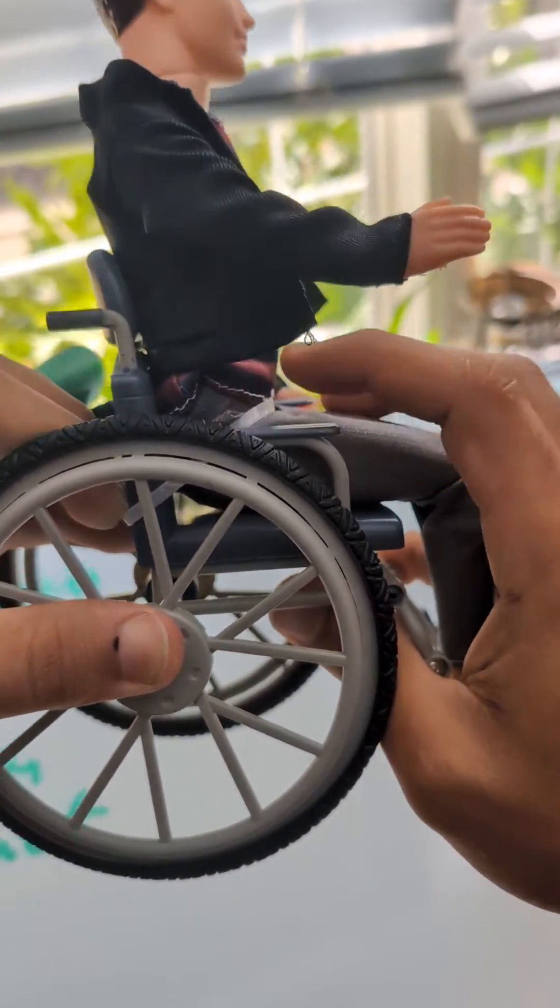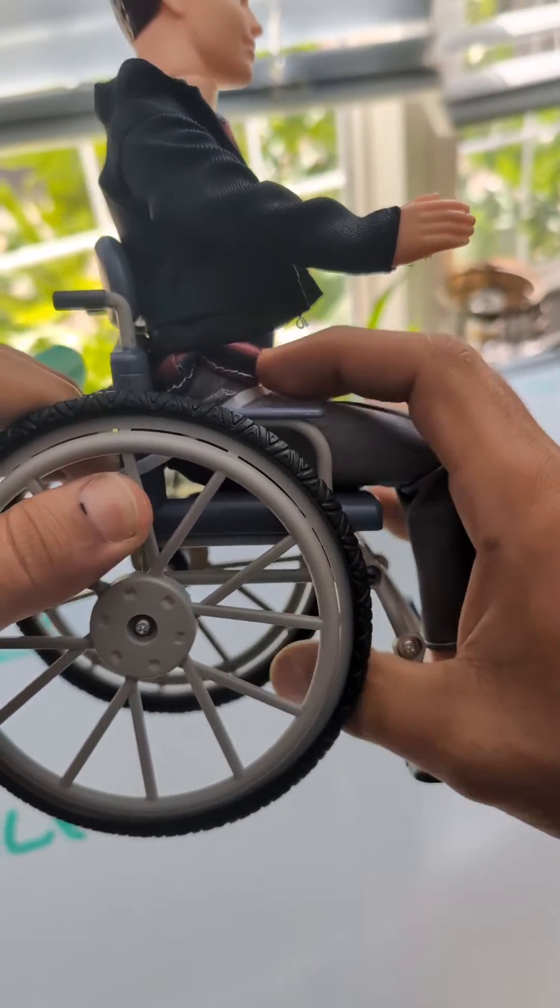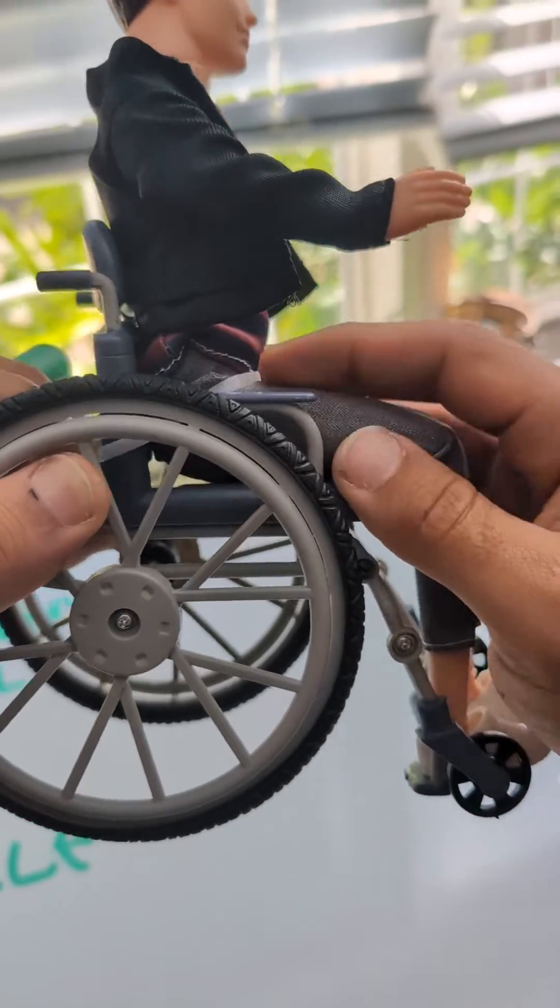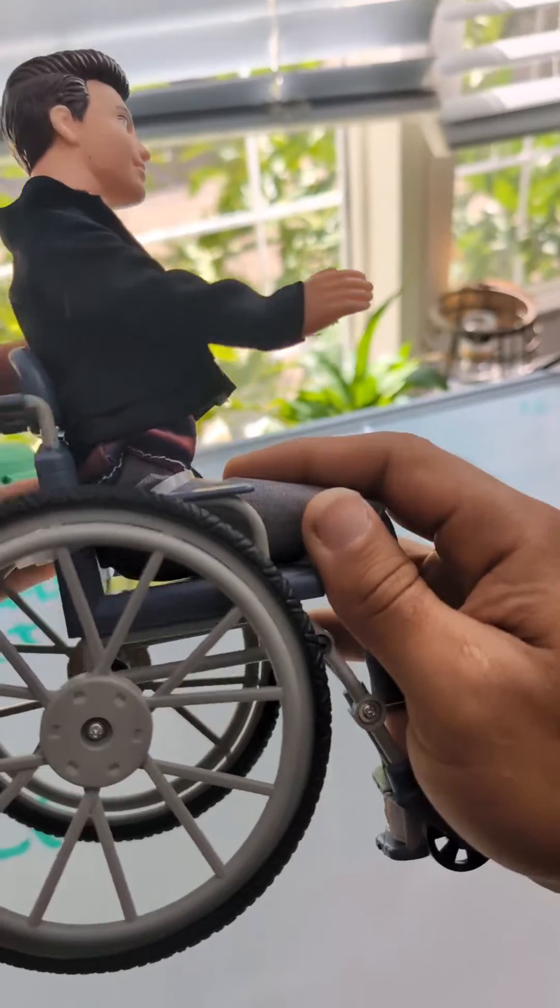Now, a 45-degree angle is not where you want to mount a padded hip belt, and you can sort of see why even in this example over here. Even though it's sort of holding him back, you can still slide underneath the belt when it's at a 45-degree angle.